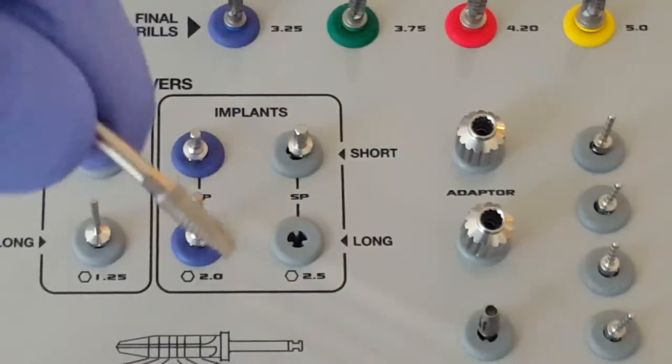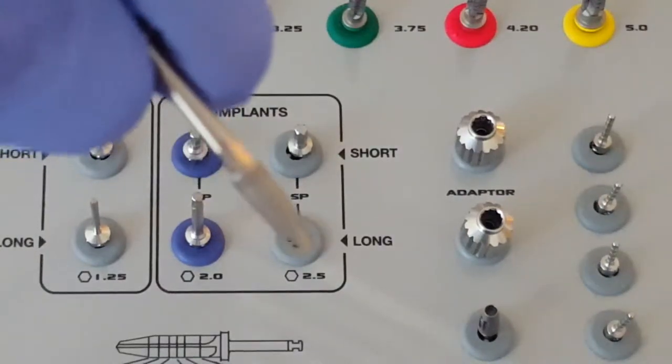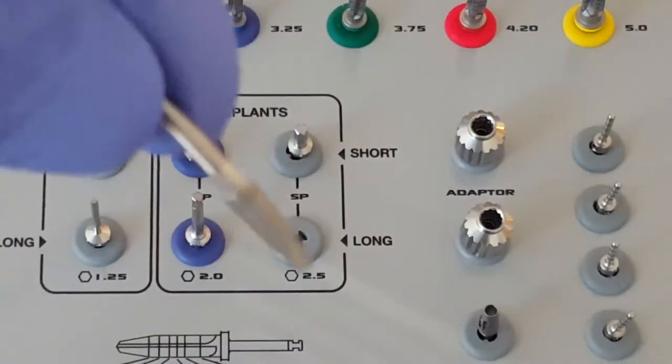Now, this can be driven many ways. It can be driven by the handpiece. We would drive it at 25 or 27 rotations per minute.